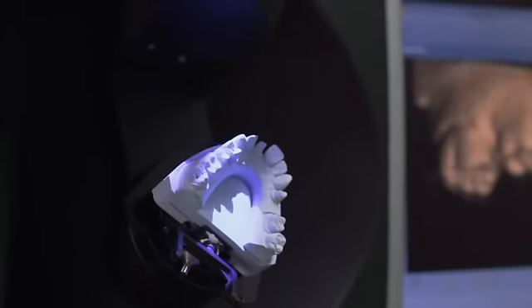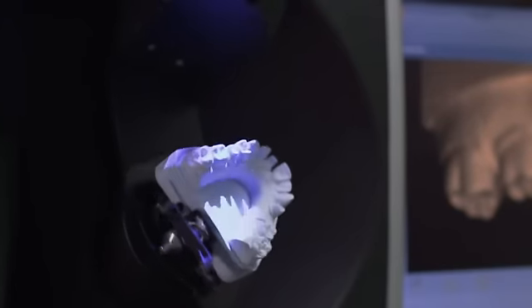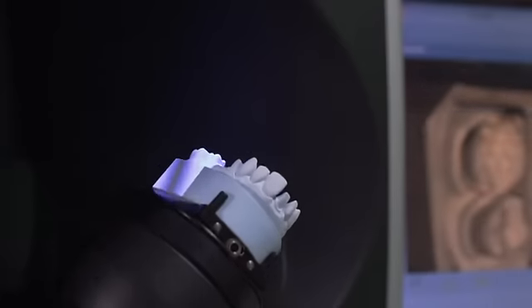Furthermore, positioning of the most popular articulators allows for unrestricted access of scanning the fully mounted articulated model.